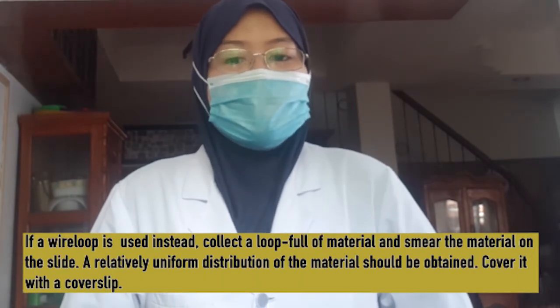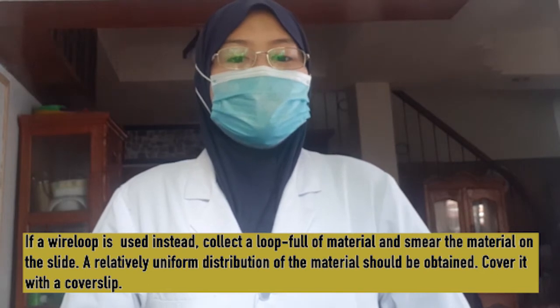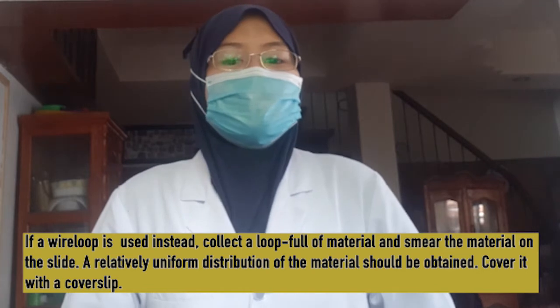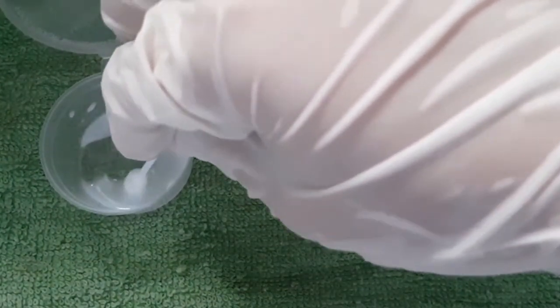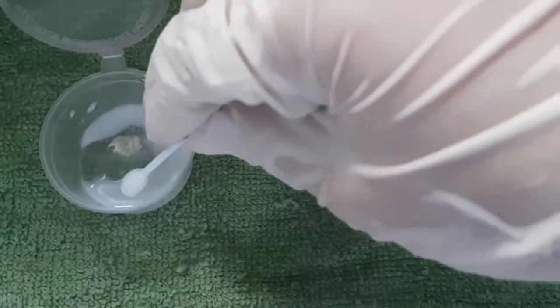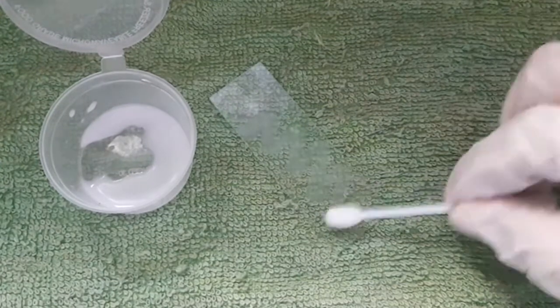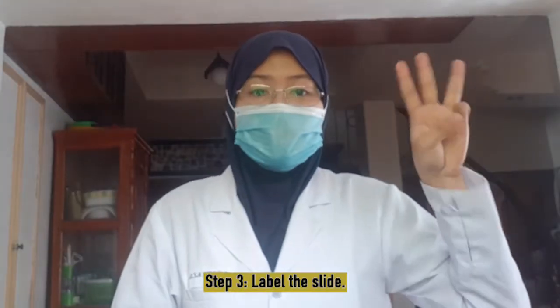the slide. If a wire loop is used instead, collect a loopful of the material and smear the material on the slide. A relatively uniform distribution of the material should be obtained. Cover it with a cover slip. Step 3. Label the slide.